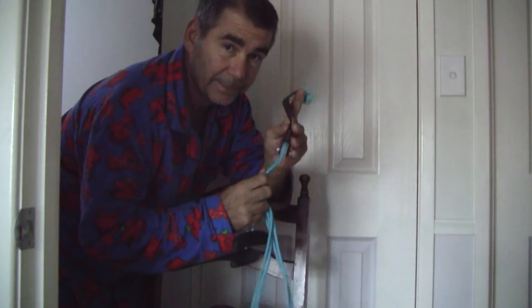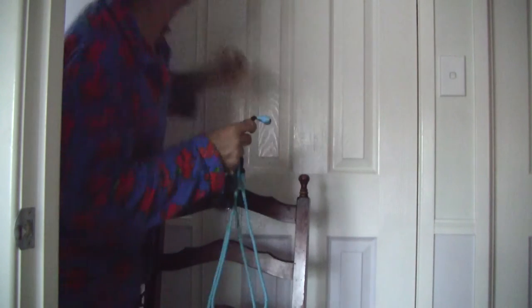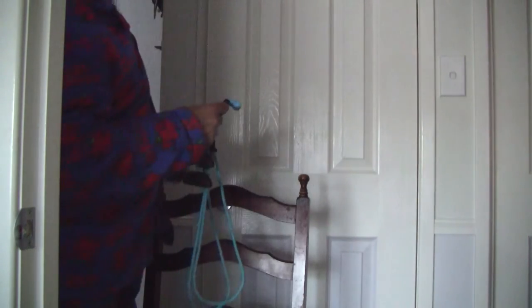At six weeks, most people are just taking their slings off now. This is my sling — I haven't used it for four weeks or more, all because of this device.